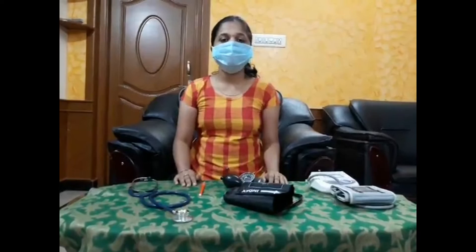Hello everyone, welcome to MediCosfer. This is the video representing how to measure the blood pressure of a patient. For taking blood pressure, we need two medical equipments: the sphygmomanometer and a stethoscope.